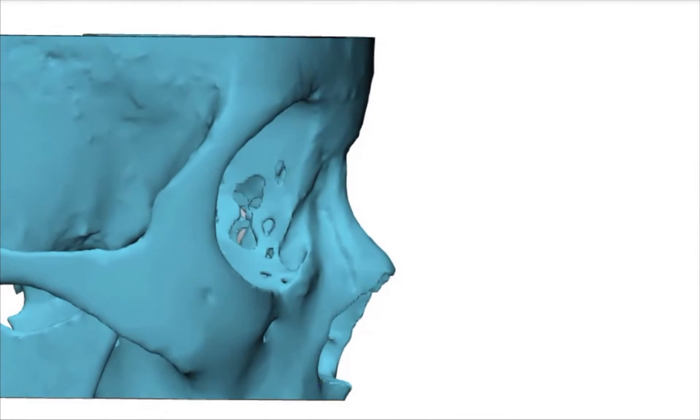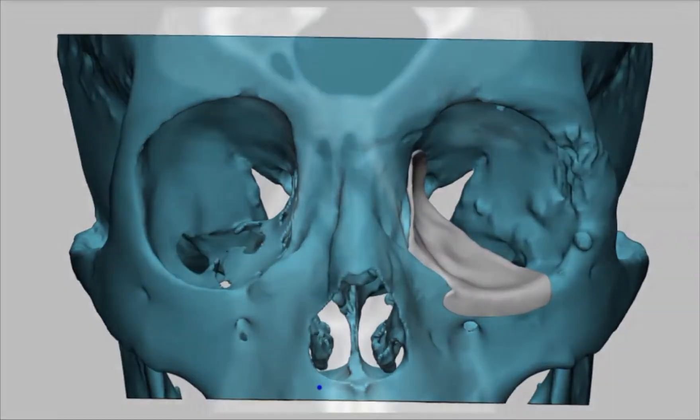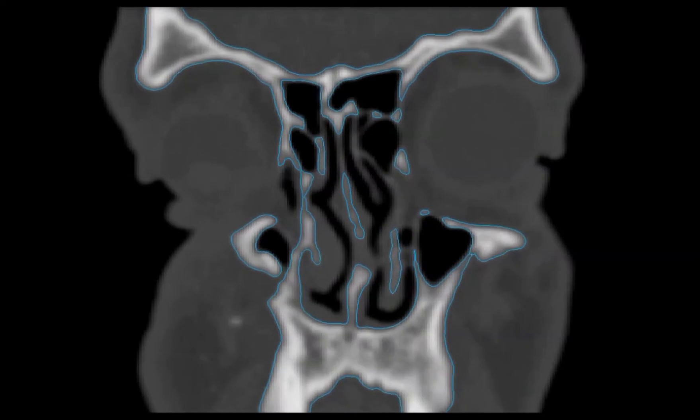Here is a 3D view of the patient. The patient-specific implant accounts for bone loss on the inferior orbital rim. Case 3.